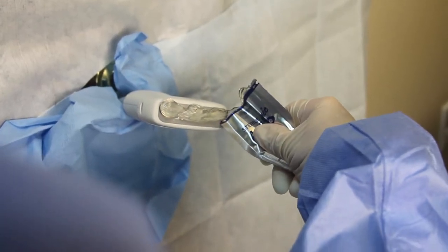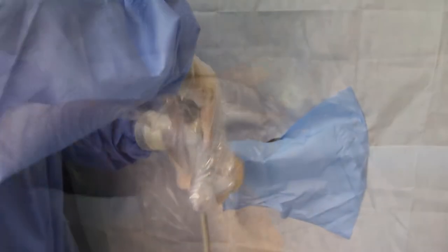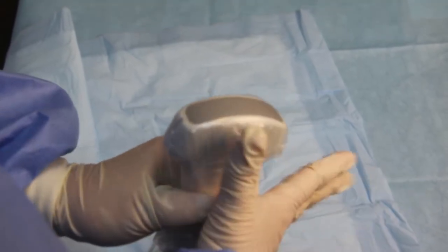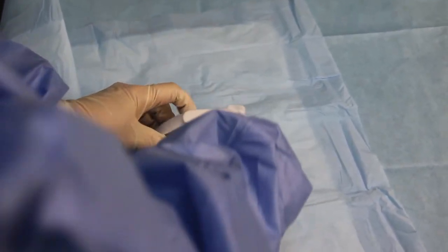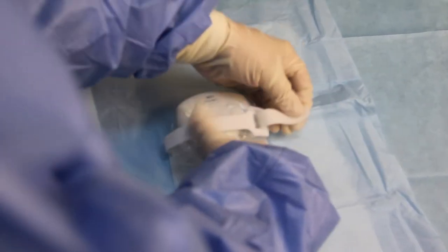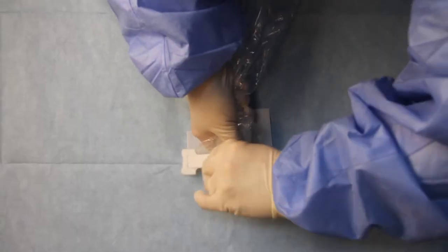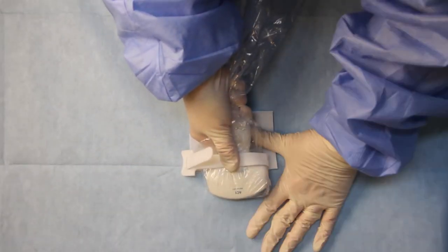After prepping the probe with gel and the sterile sheath, put it through the loop with your thumb on top. Lift the tab and place your thumb underneath. Then pull the loop off the device with your other hand lightly pressing down on the rest of the AnchorSound.